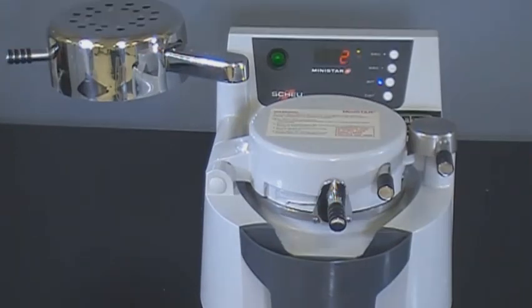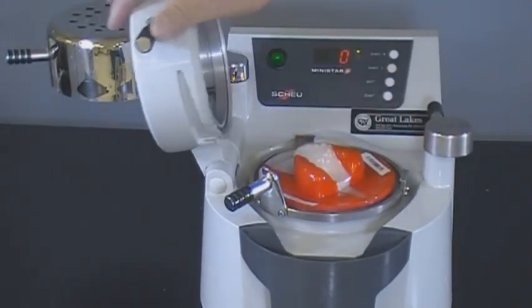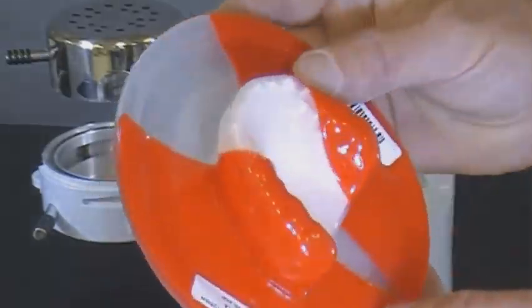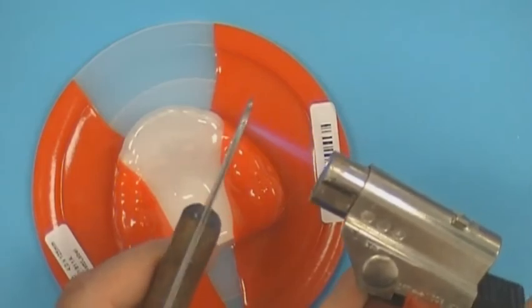At the end of the pressure molding and cooling cycle, press the air button on the machine to release pressure. Unlock the pressure chamber handle and clamped material, then swing open the pressure chamber. Remove material and model from platform. Heat a lab knife with a micro or blazer torch and cut out the mouth guard shape while the formed material remains on the model.